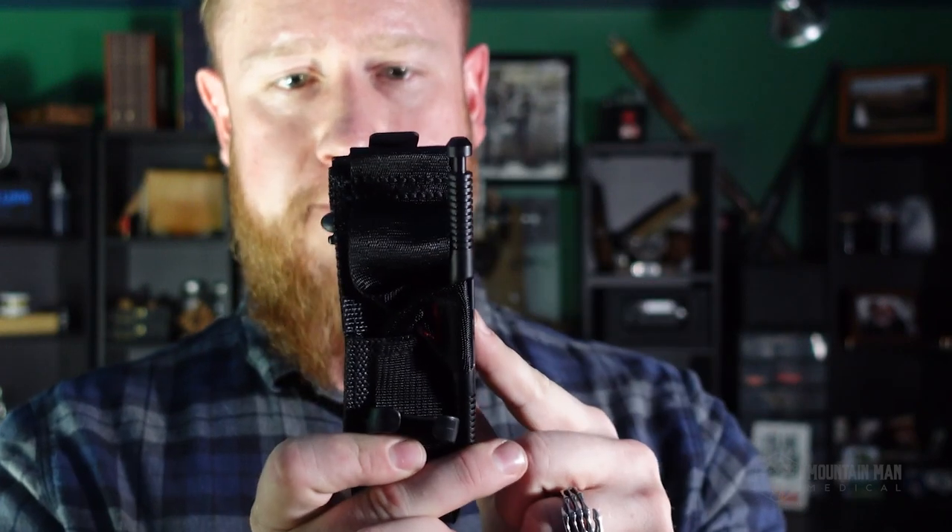You see how it's on the side — that's pretty important. You can position it in the middle, but having it to the side will help to reduce the size of this tourniquet. And there you go, that's completely flat folded.